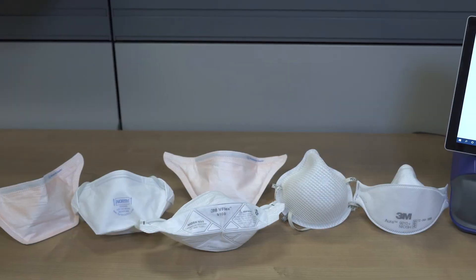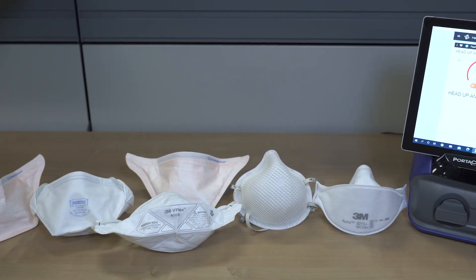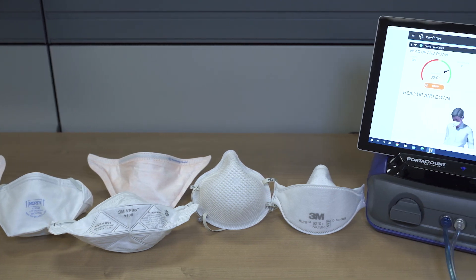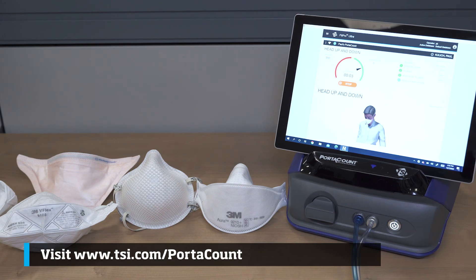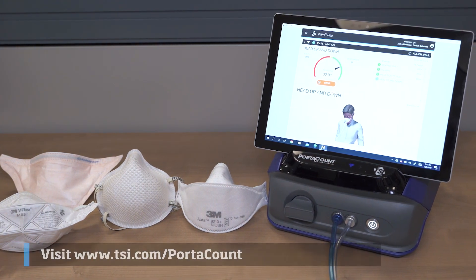Thank you for joining us. For more information on respirator fit testing and the PortaCount respirator fit tester, see our other videos or visit TSI.com/PortaCount.